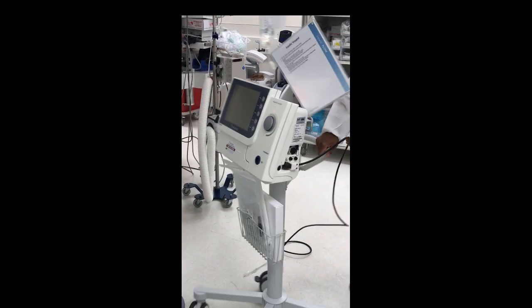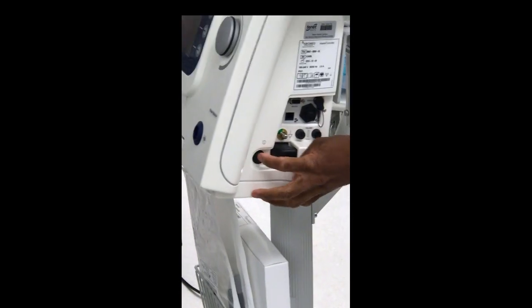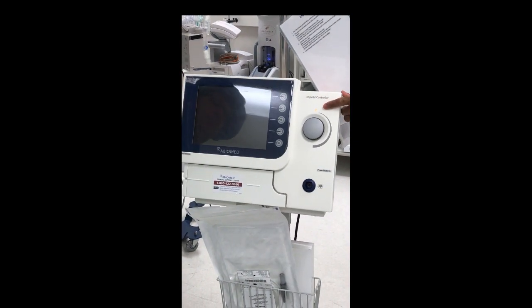On this side, notice the black power button. If I just tap it, you hear a beep, but the light is still yellow — it hasn't powered up yet. You have to hold it for three to five seconds. Go ahead and push the button and hold it for three to five seconds.